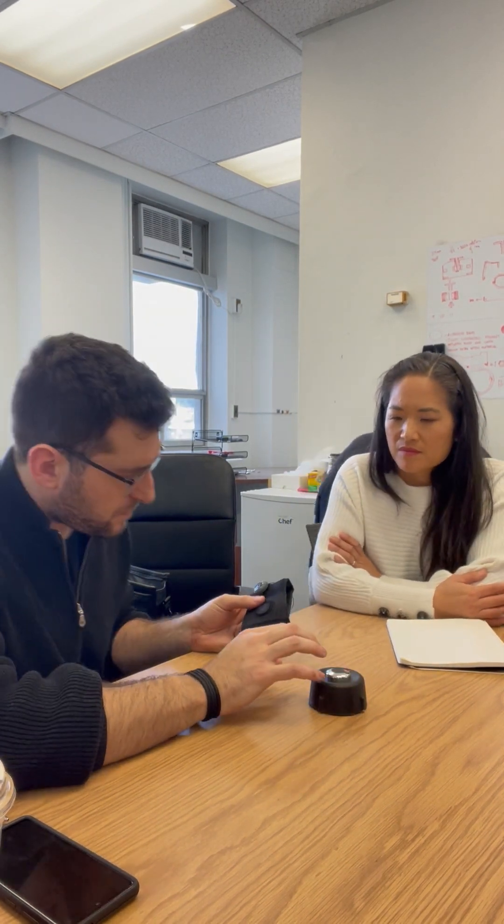Functionality was all there but we were looking at usability. On this part of the glove you have an embedded magnet, and you have another magnet on this side — that way you can just approach it and it's really easy to put on and take off. One issue we noticed during early testing is that sometimes the device would fall off to the side during movement and break. That's why we added velcro — the magnets provide attachment up and down, the velcro provides side to side. Without the velcro, we were seeing the device fall off and break during everyday use.